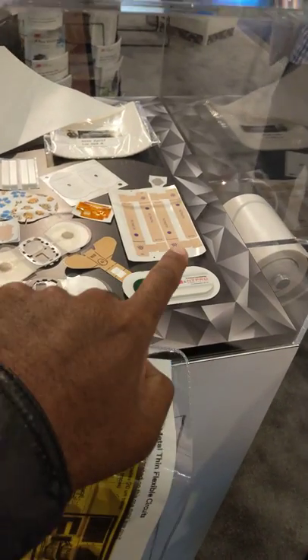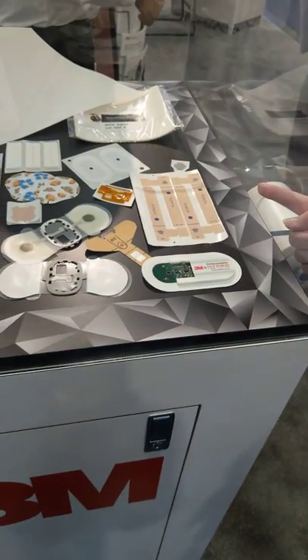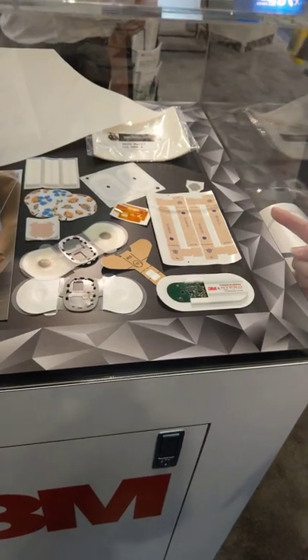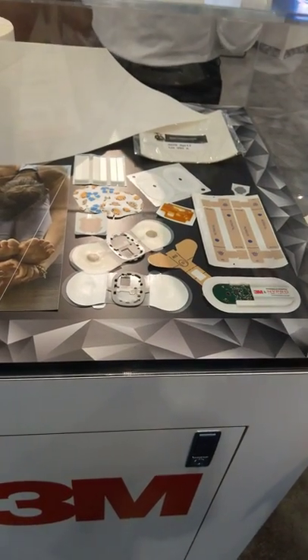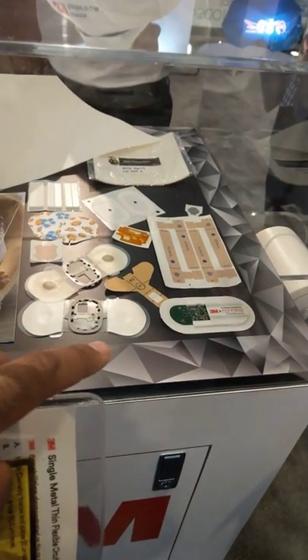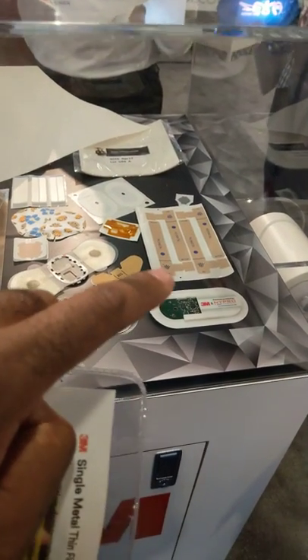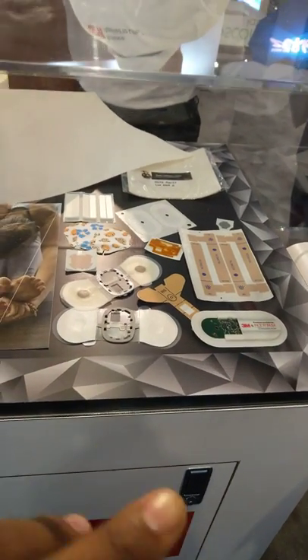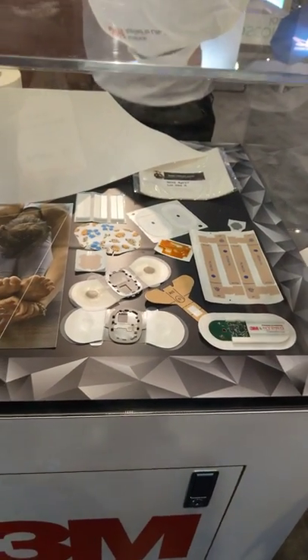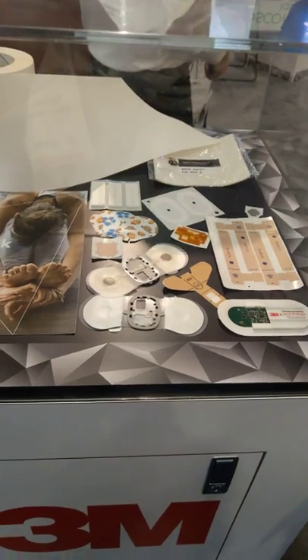So that's like a band-aid? This is not a band-aid, it's a pulse oximeter. So would you be able to get more information now besides pulse oximeter? I know it usually gets the O2 and the heart rate, but anything more than that? Or would you be able to program things a little bit more than that, or just those two things?